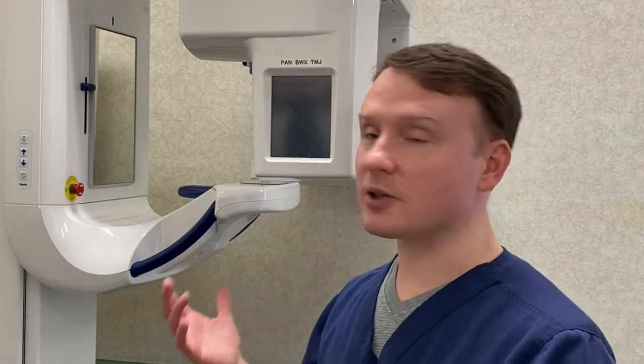There are a lot of different uses for the panoramic x-ray machine, but it is mainly used for detecting wisdom teeth, their location, and how many. The advantage is that this type of x-ray will let us know where wisdom teeth are, so that when you need them out, an oral surgeon can use that image to know where to go.